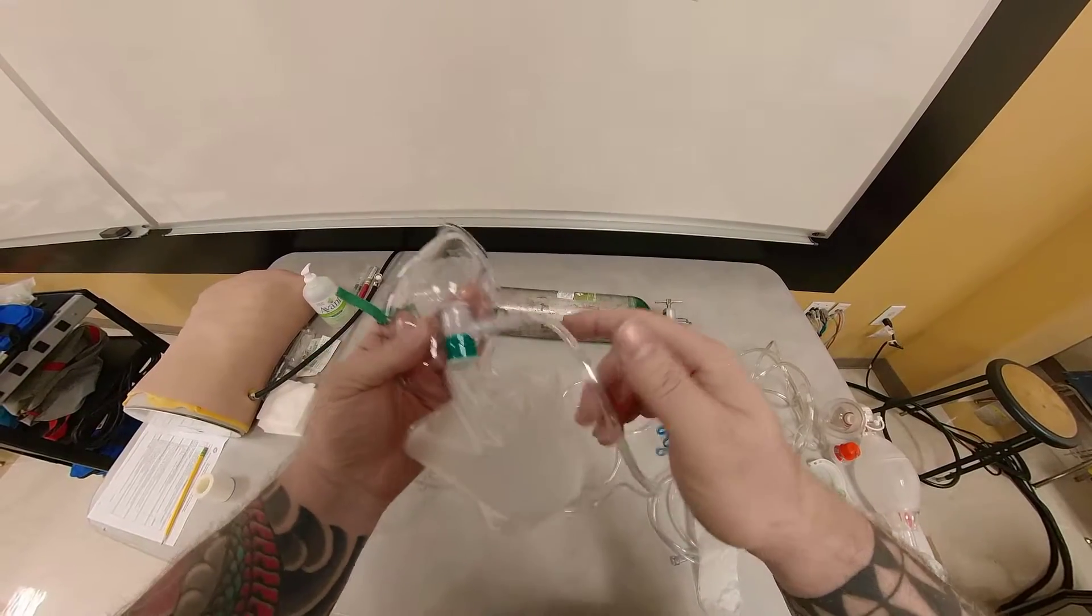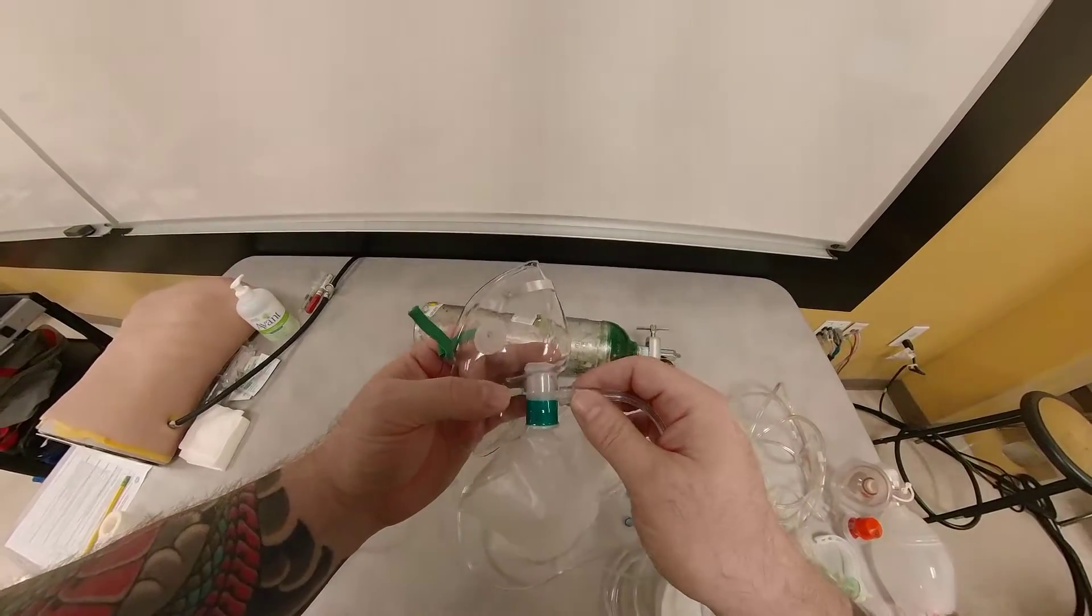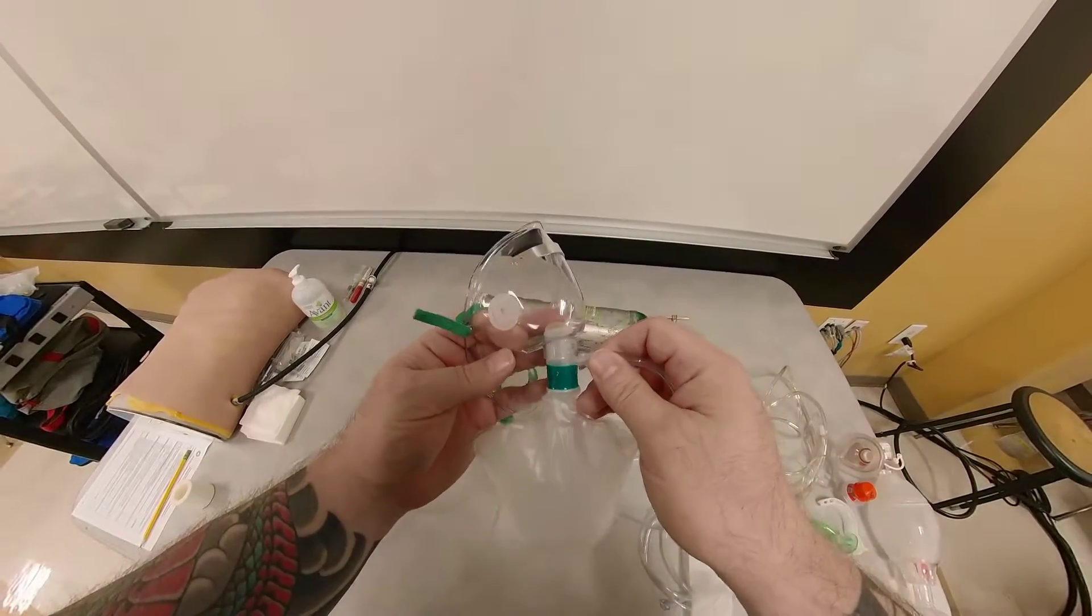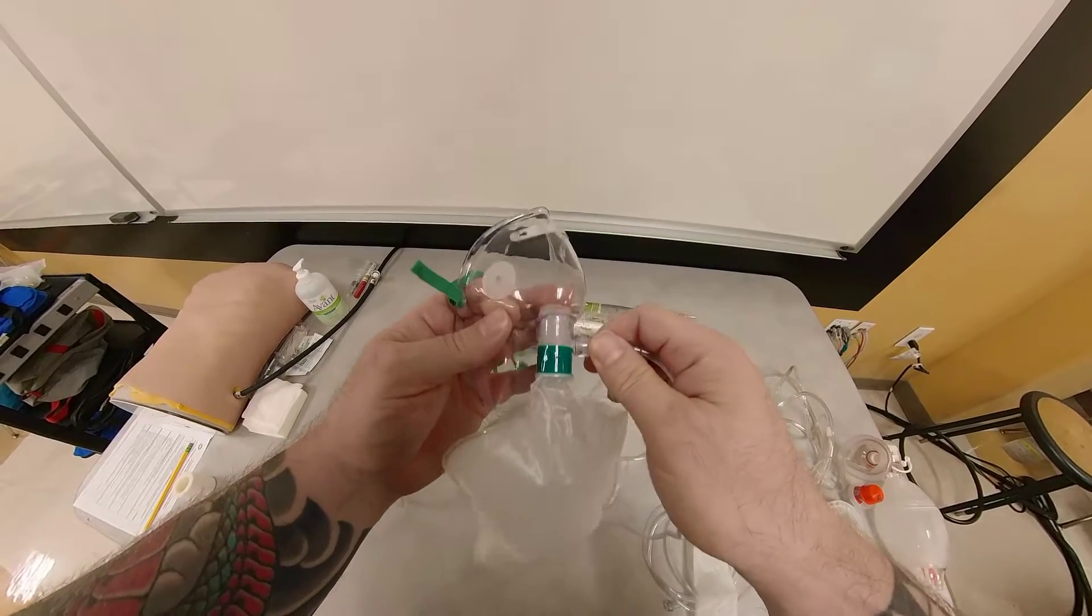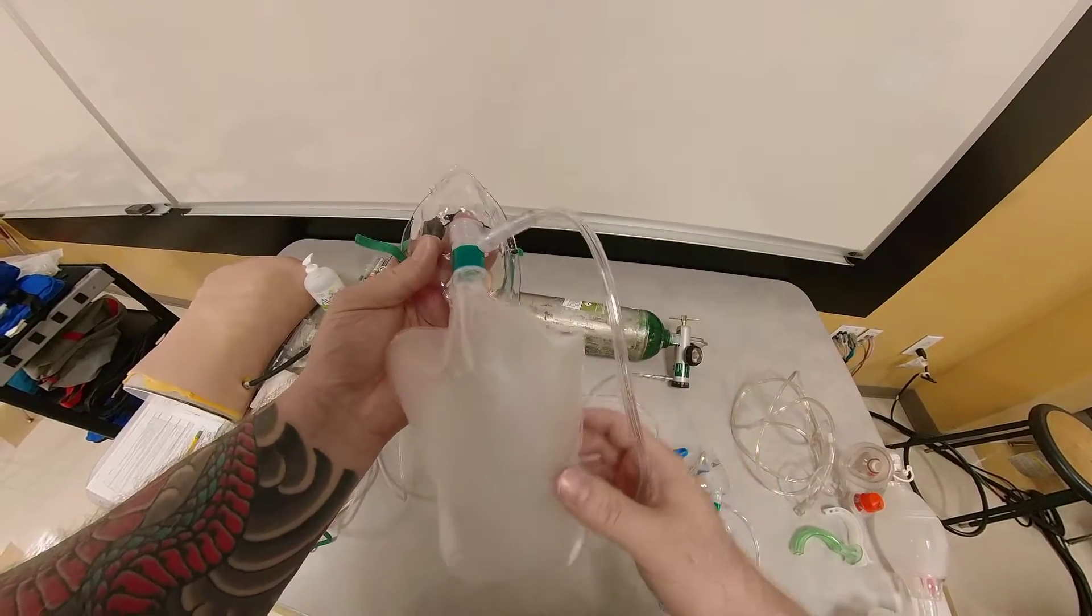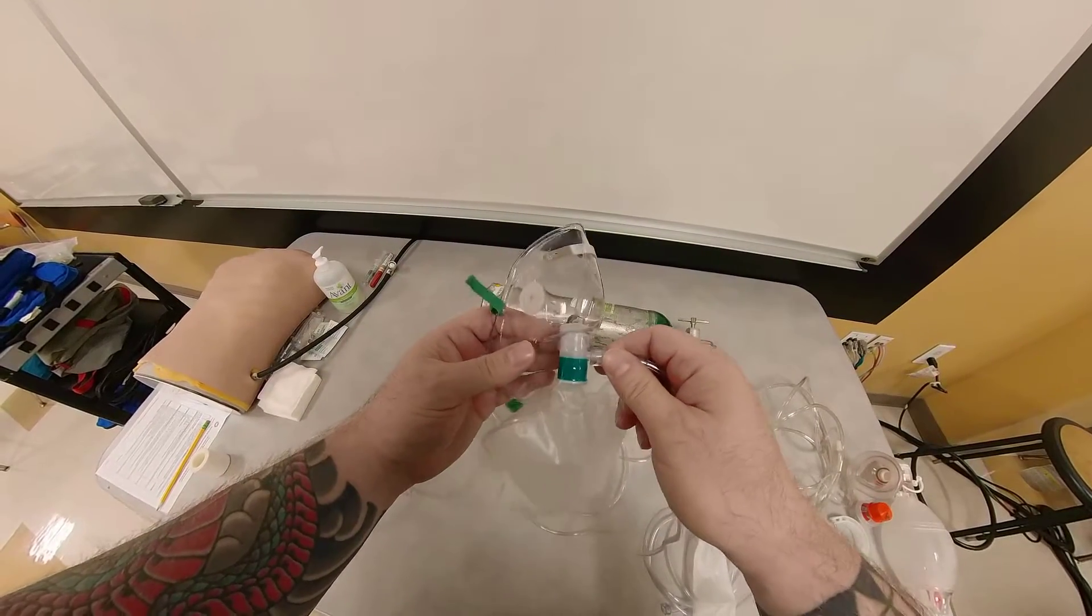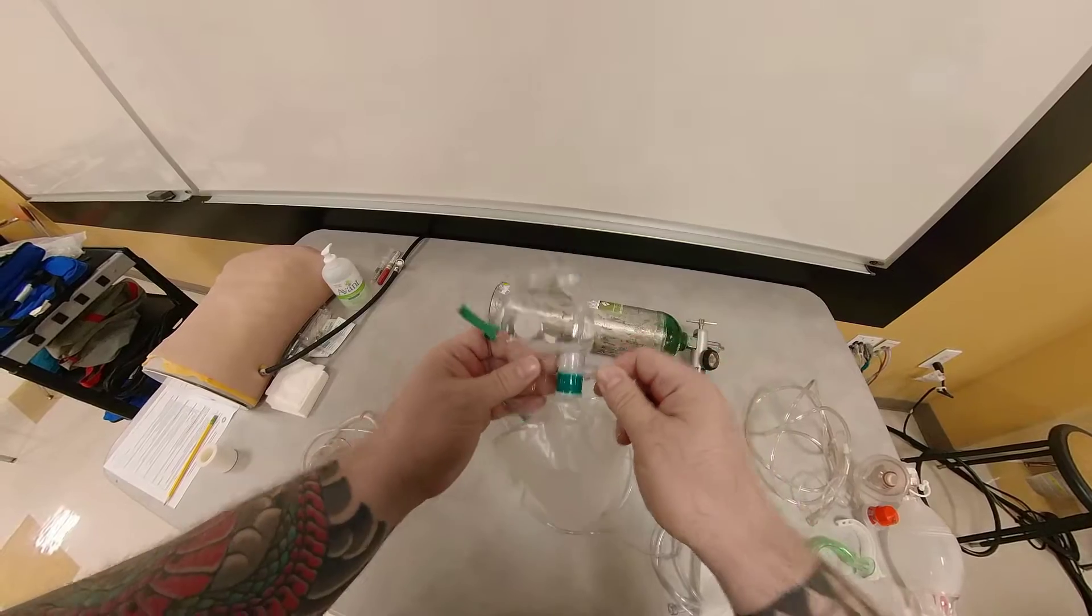But you'll say, what's the problem with that? The problem is this. With 15 liters per minute oxygen, this is only able to deliver roughly 70% FiO2. I repeat it again, 70% fractional inspired oxygen. And the problem with this is that if I want to pre-oxygenate my patient, I'm not getting adequate FiO2 as I can with a true non-rebreather mask.